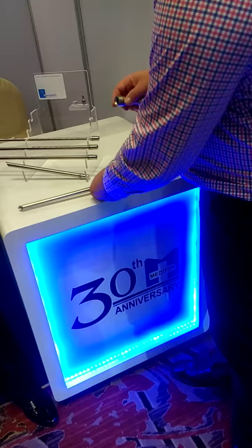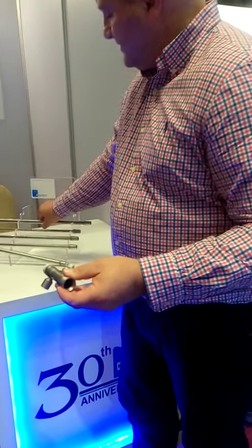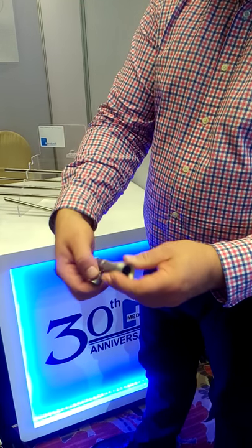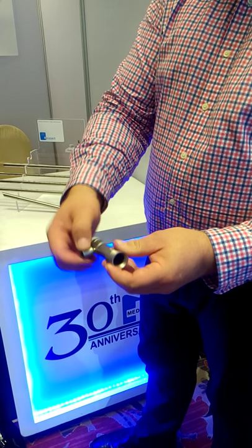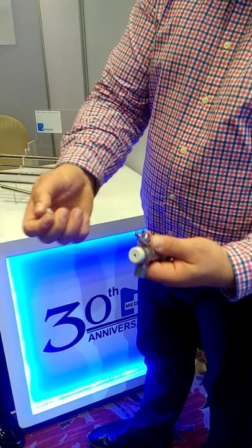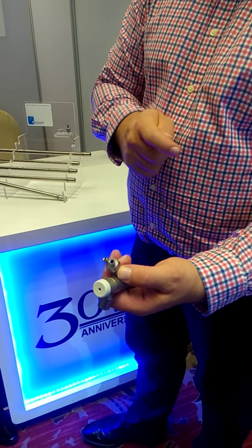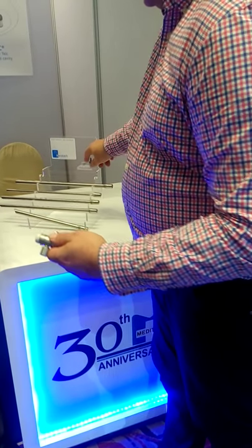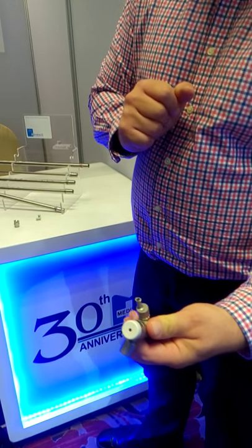This is the attachment for the ventilation. You can attach it to a normal standard ventilation system, and you can swivel it, which is quite convenient in daily use. Then you have here a double port, which is good for laser — one side you can go in with the laser, and the other you can go with the flexible suction.